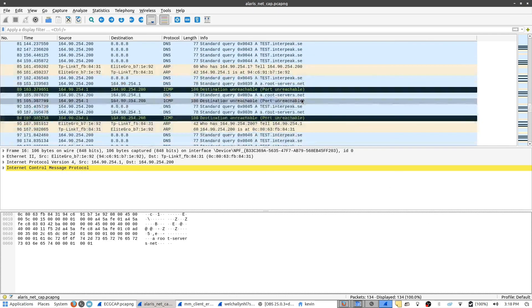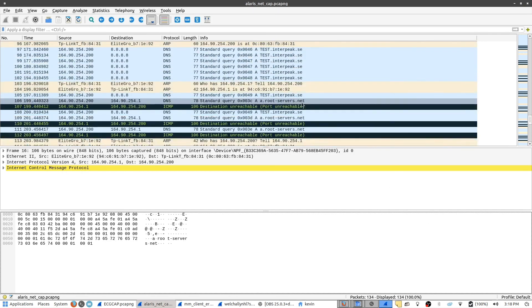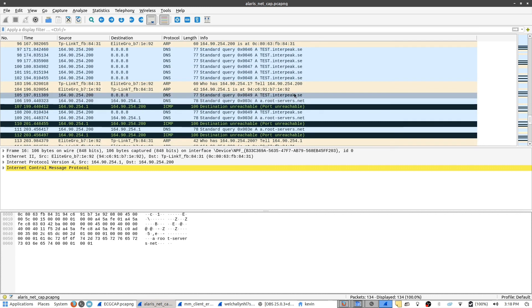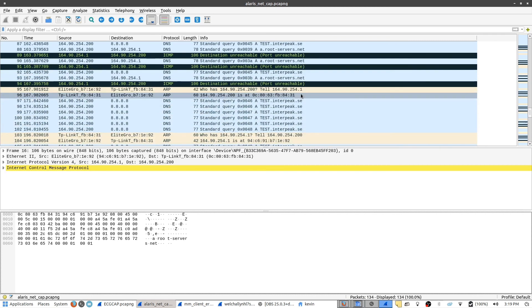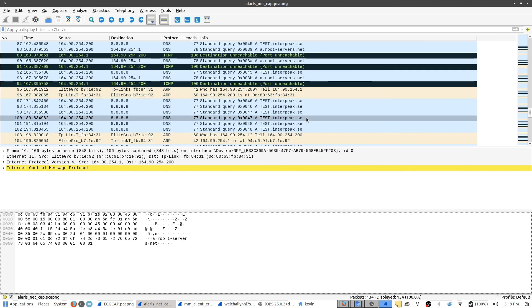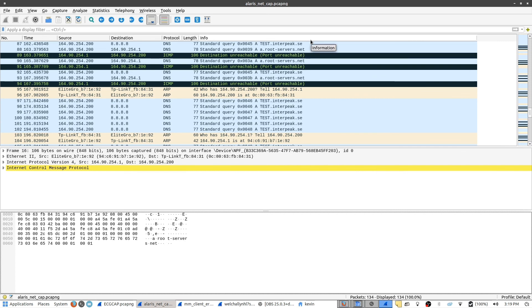So these are all different approaches to discovering what's wrong. Based on it continually trying to reach out and find things, it's not able to actually reach or find what it's looking for — hence why it's not actually sending any data, and there's never any TCP stream that sends data to something else. As a diagnostic tool, this was very useful.